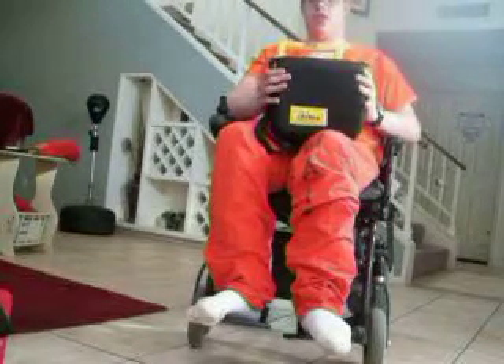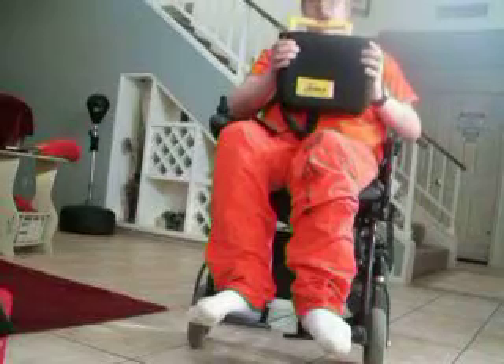Hello YouTubers, here's Nick with another defibrillator video. Today I'm going to be talking about the Medtronic LifePak 500 automated defibrillator. This is one of Medtronic's first models that came out. It's one of the most popular units around, found in airports, schools, almost anywhere in public areas. It's actually the AED in my high school. So I'll begin the video by taking you through how it really works.